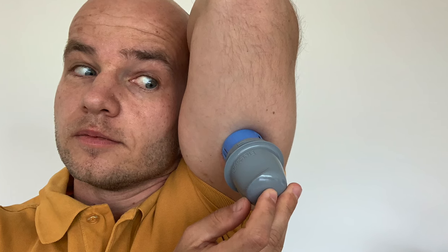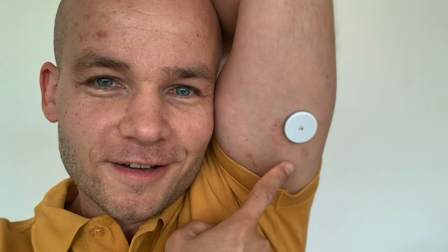This spot recommended by Abbott is really not that bad. It's very accurate and it's quite comfortable. You can also rely on Abbott to replace any faulty sensor that you placed in your upper arm in case it was giving you faulty readings or if it fell off too early. And by the way, it is unlikely that Abbott would give you a free replacement if you tell them that you placed your sensor somewhere other than the recommended site.